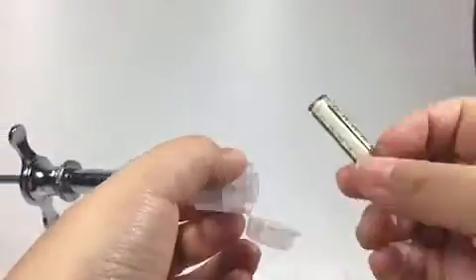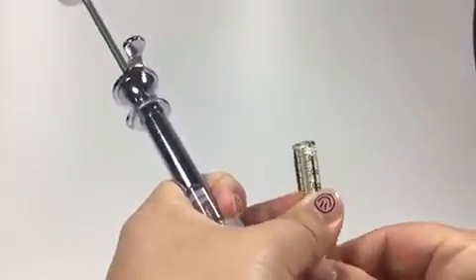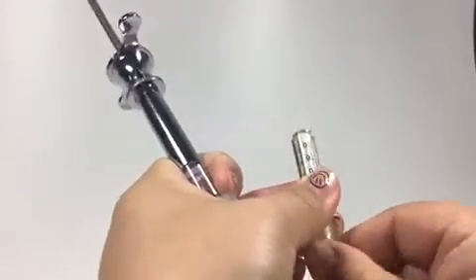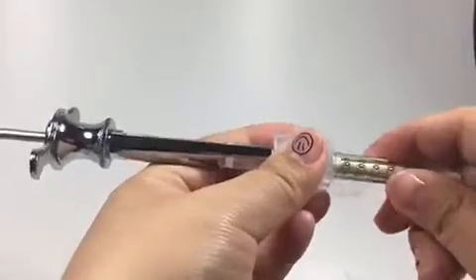I'd like to use another nozzle for a second time — going up and down, make it smooth, then connect each other for the second transfer. No leakages.